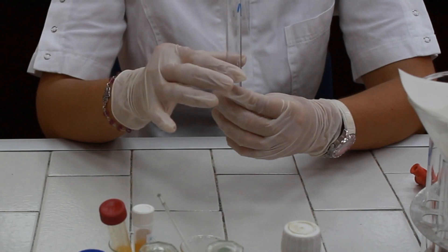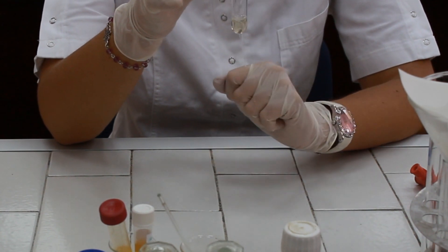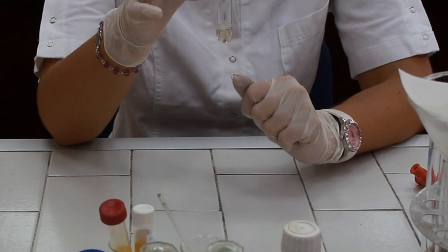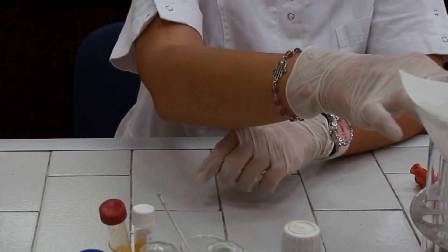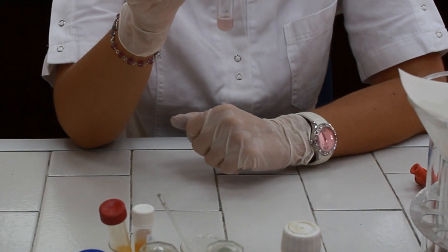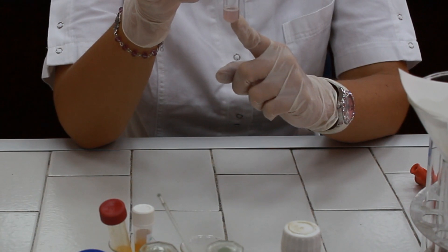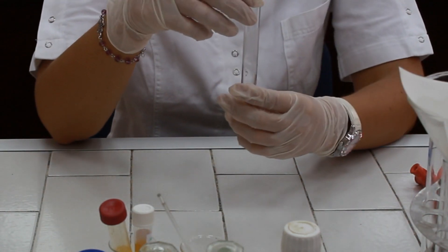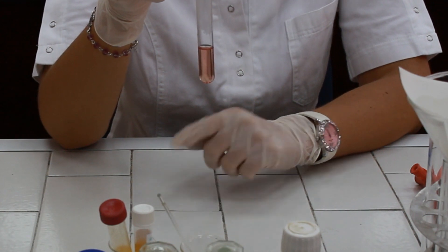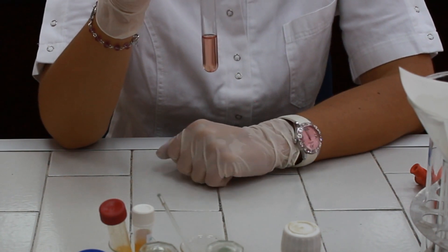So let's start from the beginning. Reaction number one was determination of direct bilirubin in serum. The reaction is negative, which is normal for healthy persons since direct bilirubin is not normally present in serum or present in extremely small quantities. Reaction number two is determination of indirect bilirubin, which is normally present in each healthy person, and as a result of the positive reaction the color of the solution turns pale pink. Reaction number three was determination of the presence of urobilinogen in urine, and after heating the solution for a couple of minutes, the red color of the solution appears as a positive reaction.